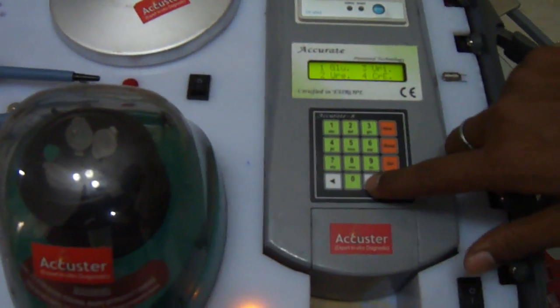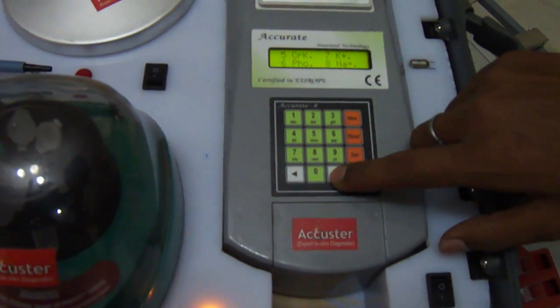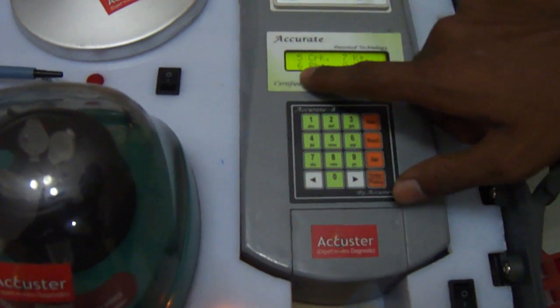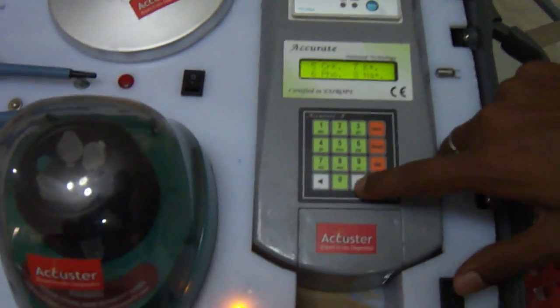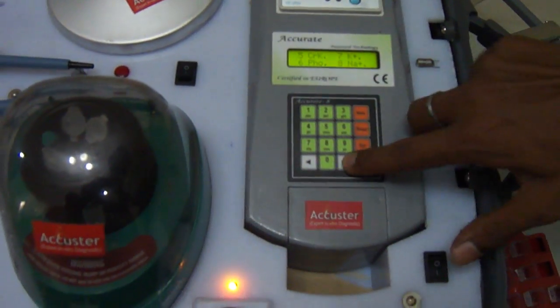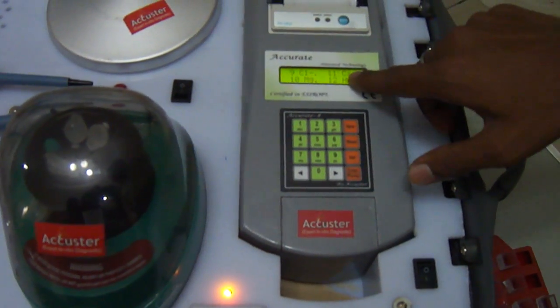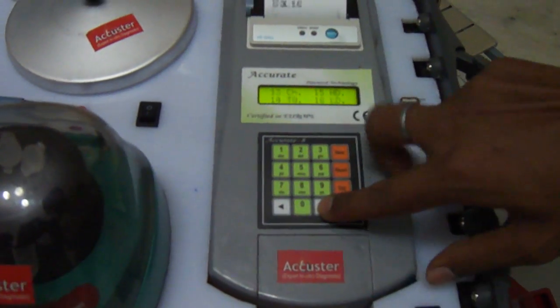You can see more tests by scrolling the key. Like glucose, urea, uric acid, creatinine, sodium, potassium, phosphorus, chloride, calcium, magnesium, hemoglobin.